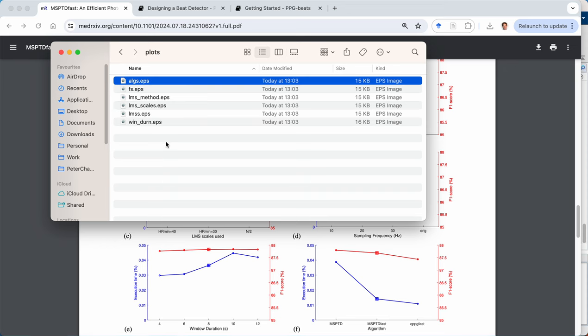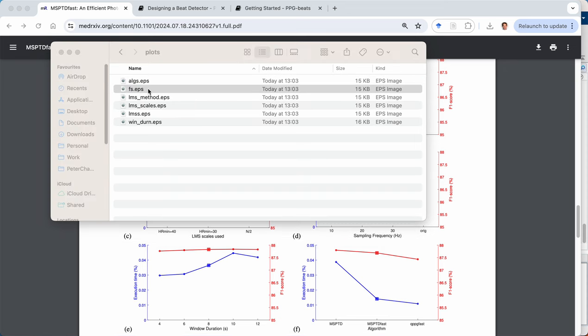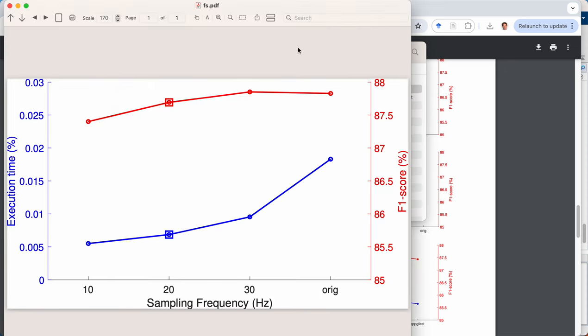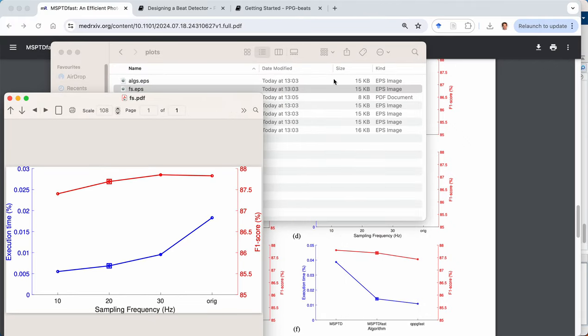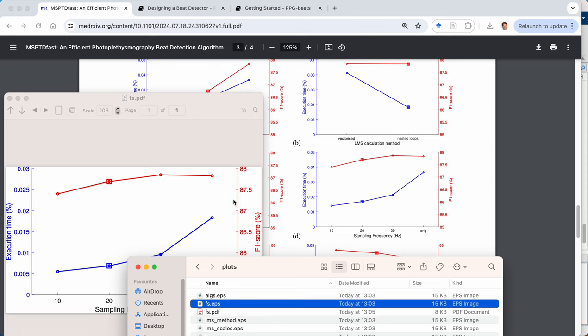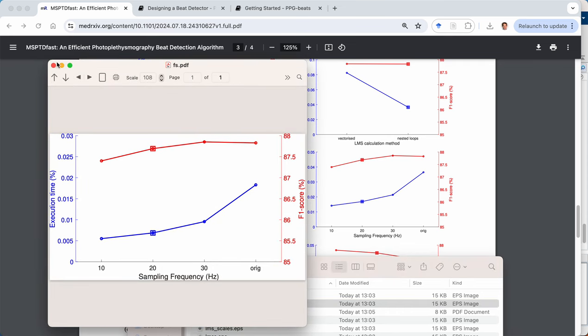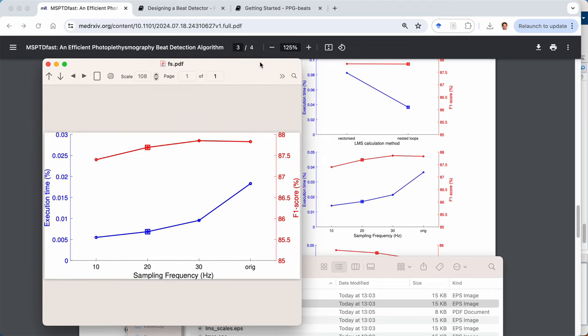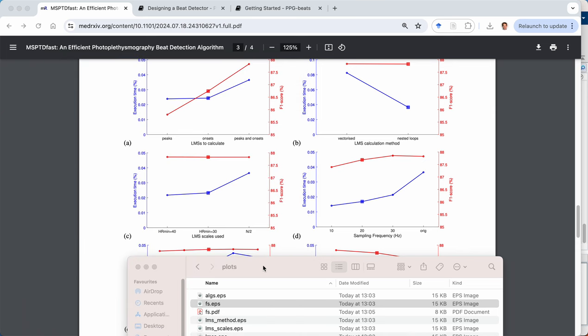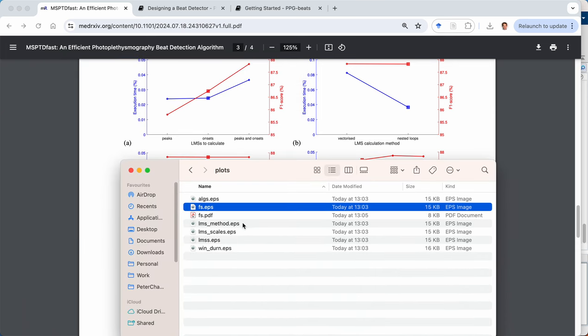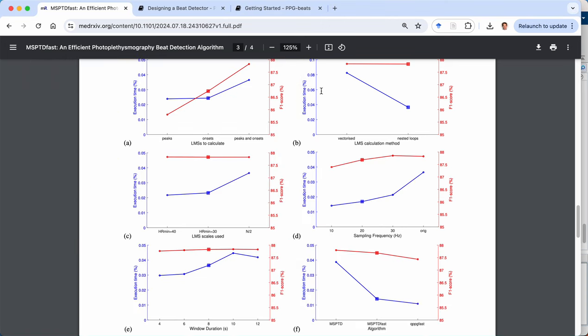Now that was in the reported publication. So let's open the plot that we've just generated and let's compare these two. So here we have the newly generated plot and the one from the paper. So you'll see broadly the same sort of trends, which is reassuring. And one thing to note is that the execution time differs very slightly. So the axis on the paper goes up to 0.05, whereas it goes up to 0.03 here. And that's because I'm running this on a different computer. And I suspect that the execution time would differ slightly each time you run the analysis.